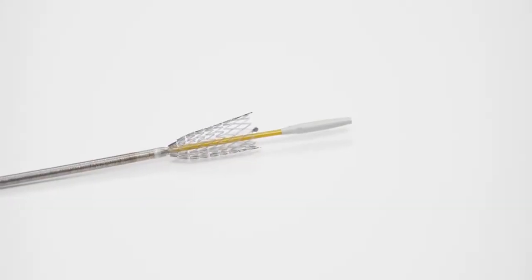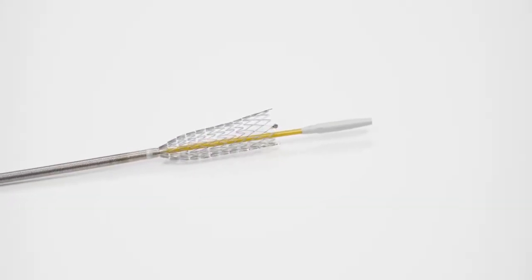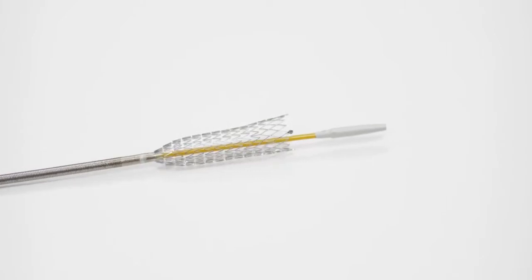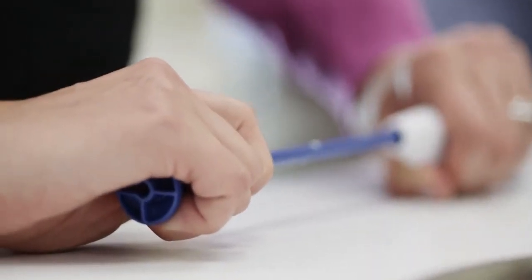Simple innovations that led to a delivery system that simplifies stenting procedures, improves predictability, accuracy, and delivers the widest size matrix of SFA stents.